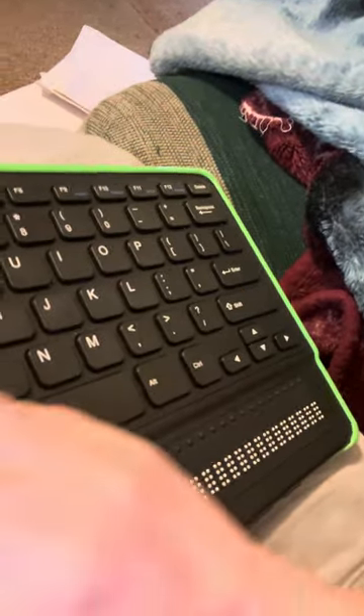It's got a little wrap around it, like a case — similar to how an iPhone might have a case, this has a case too. It's 40 cells across, with a regular QWERTY keyboard like you'd use for typing. On the right side there's nothing, and on the back there's a port for what I believe is an SD card. There are also some ports on the left side. The power button is right here — it's kind of flush with the case.